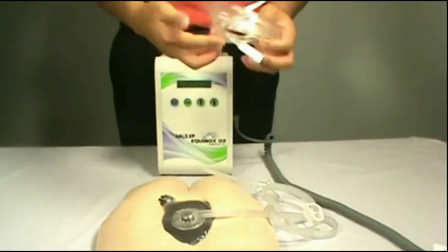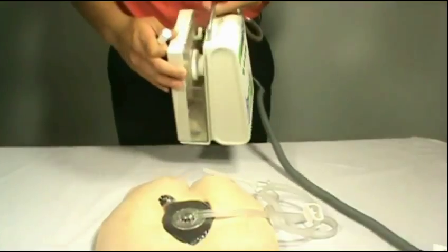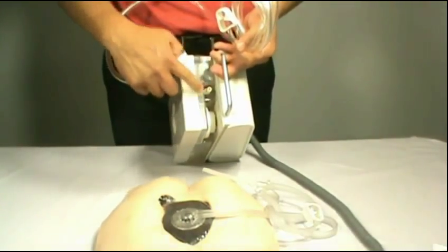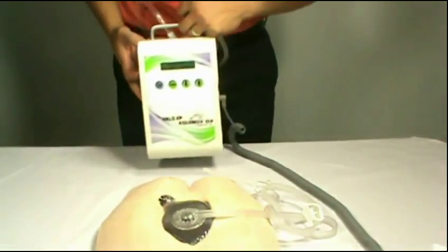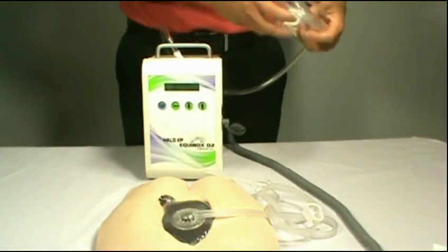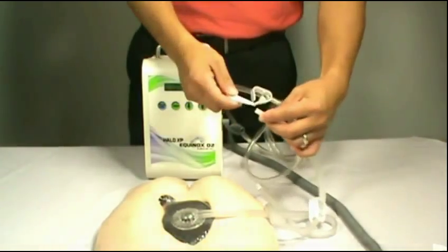Connect your canister tubing to the canister. One end goes to the canister, like so. And the other end will connect to the dome tubing with an adapter.